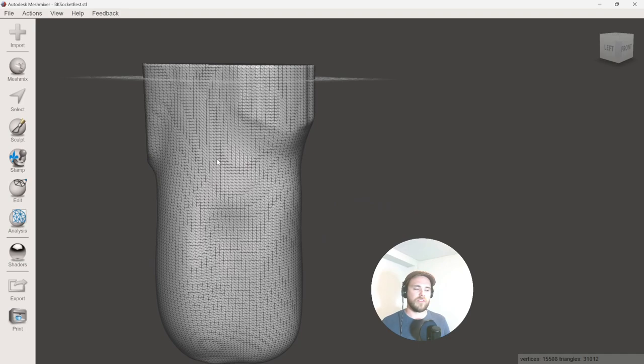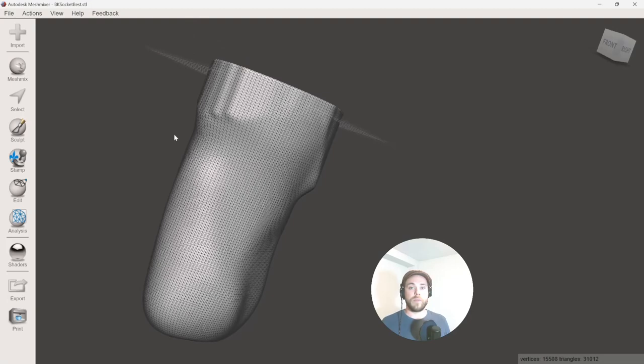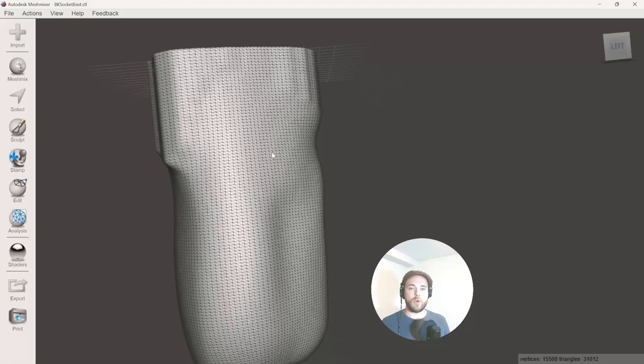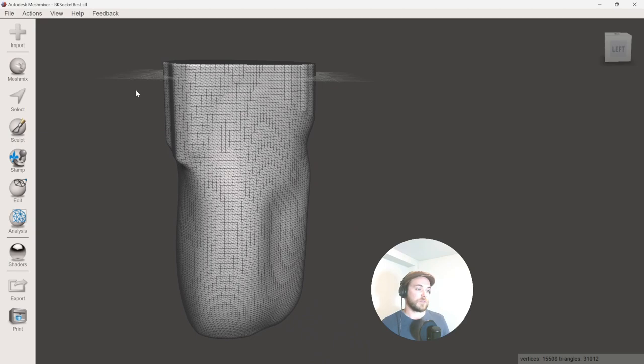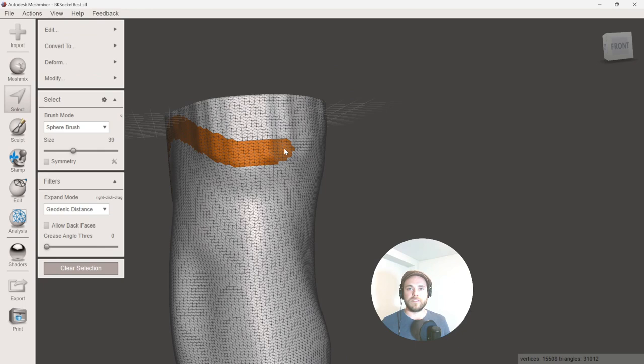So this is a clinically modified BK socket. It's coming from another program. It's been extruded and created. It's ready to go. The one thing we need to make sure we have in this mesh before we use that plugin is to have a nice smooth open boundary along the trim line edge. So I'm going to use MeshMixer to quickly just create that and export the result. So hitting S on my keyboard to select, I'm going to go through and I'm going to do my best to select this edge above the trim line. So essentially we're going to be removing this part of the mesh.